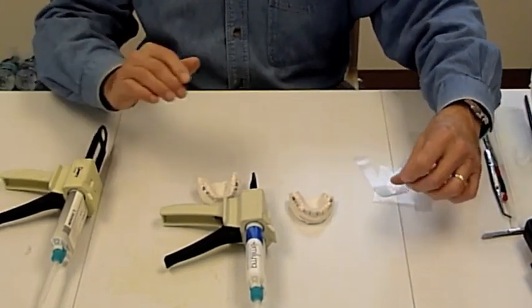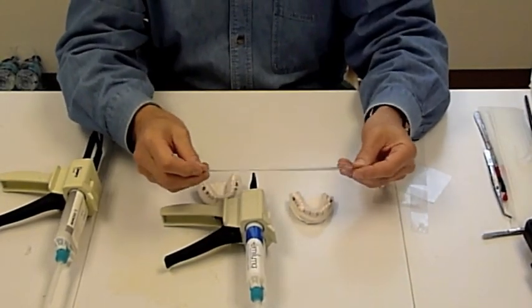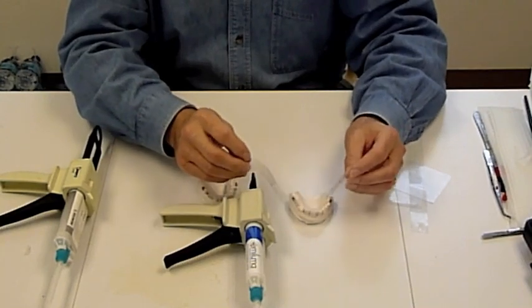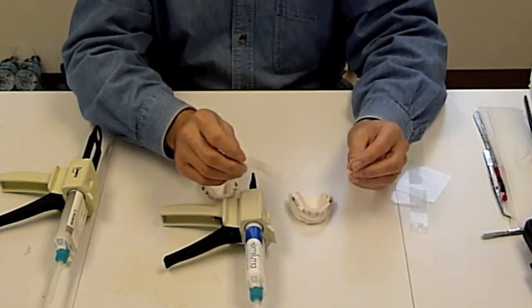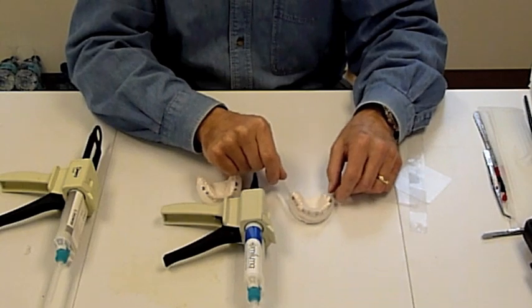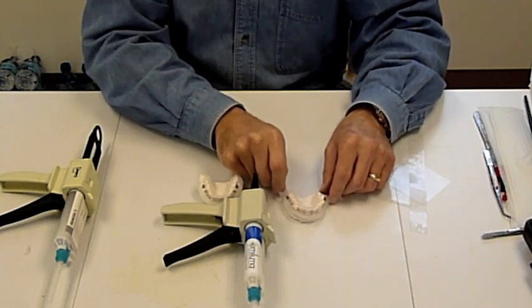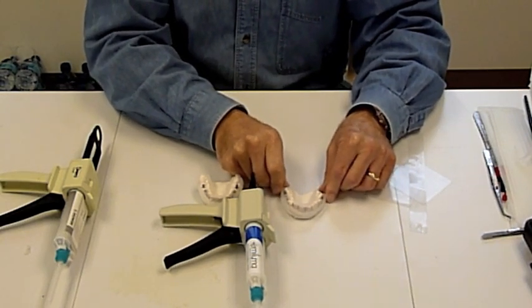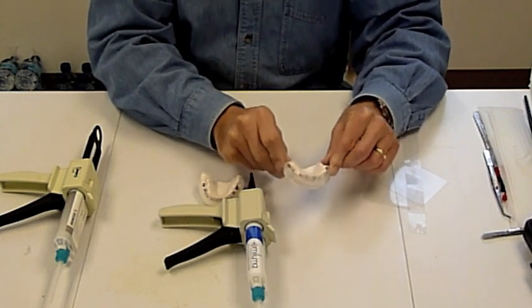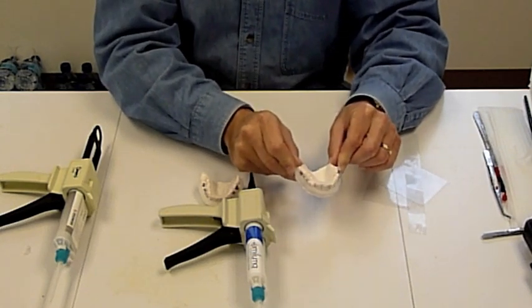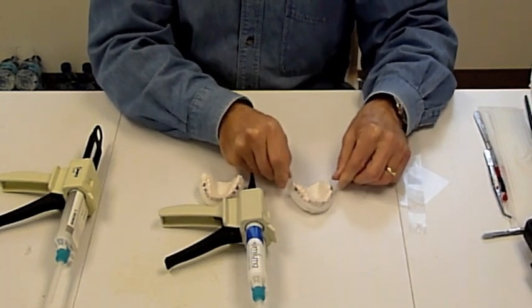In order to help finish all of this, we use some plastic sheeting. This is pretty simple to come by from any office supply store. It's just plastic from binders, page holders. We just use that around there in order to create the tray.